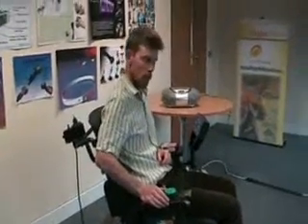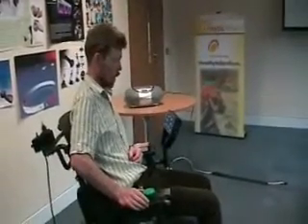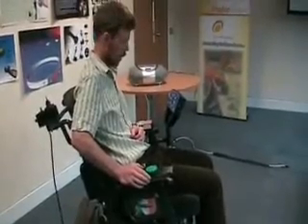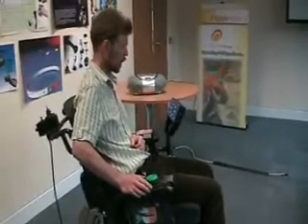In this video presentation, I'm going to give an overview of the Click2Go remote. The Click2Go remote offers an alternative way to drive a chair using a single switch or multiple switches. It is typically used where an individual will find it hard to use a standard joystick on a chair.